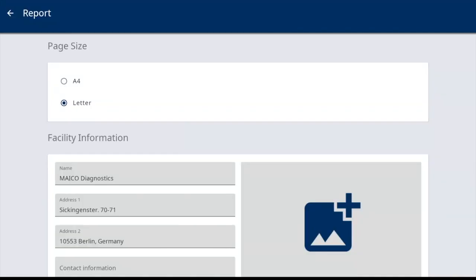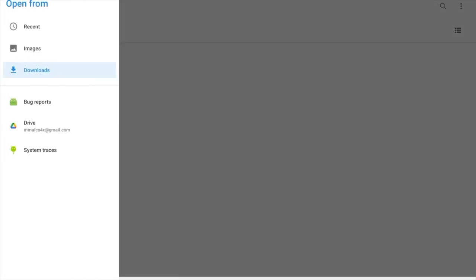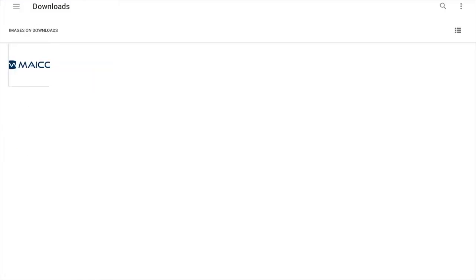Now return to the tablet and select the add image icon. This will take you to the download folder to select the logo file and import it into the report settings. If the download folder is not automatically open when you select the add image, select the hamburger menu and select downloads. Proceed with the previous mentioned steps.